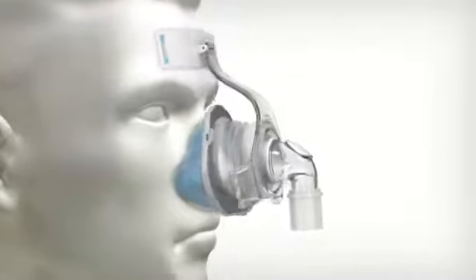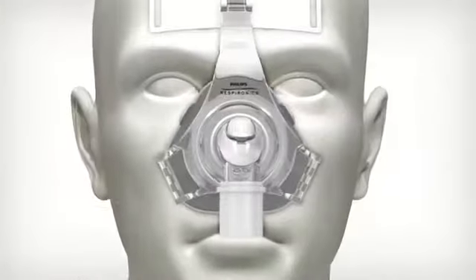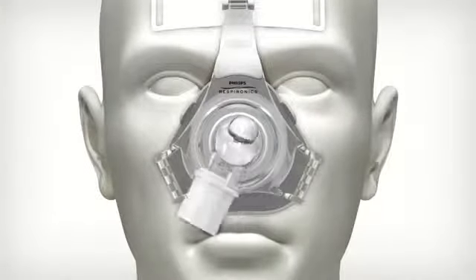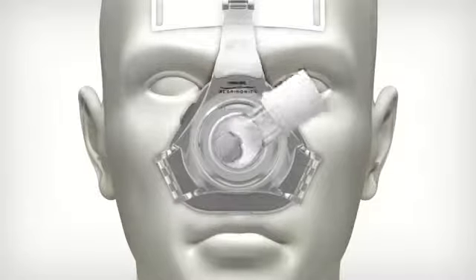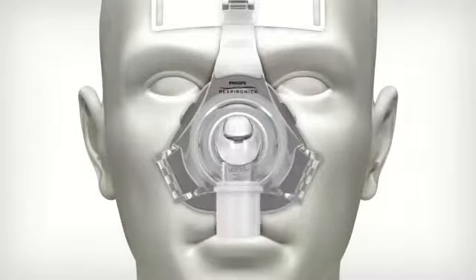In addition to AutoSeal, we use our proven angled exhalation microports to redirect air away from a bed partner. This port also rotates 360 degrees to move with the patient.